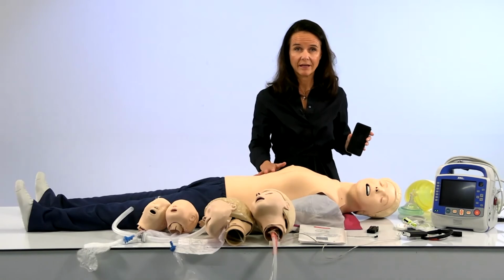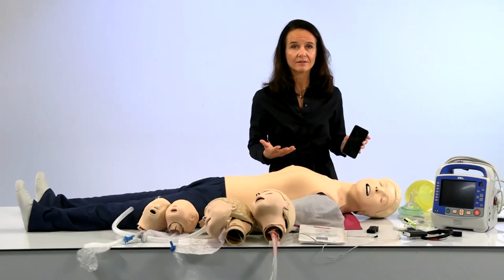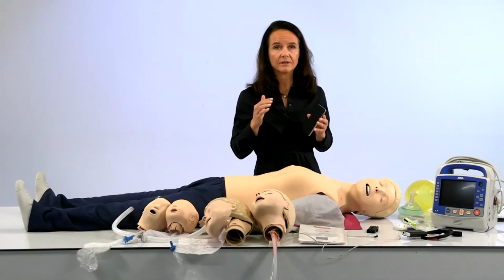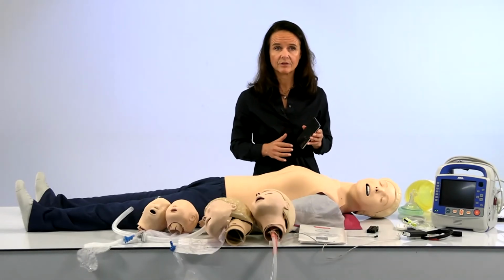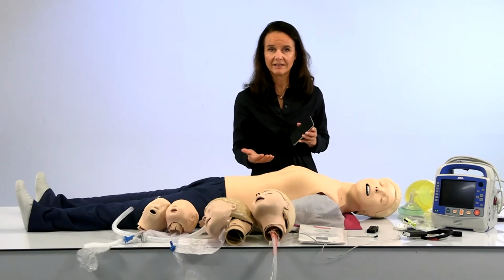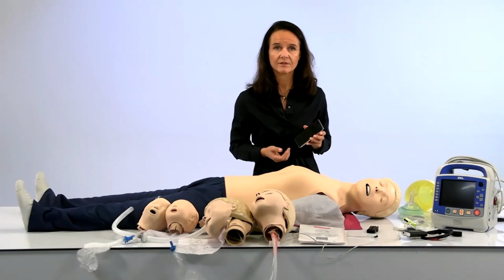And when we do have an AED skin for Junior, you will get a much better integrated experience. At that point, the application that you're using, whether it be SimPad Skill Reporter or Team Reporter, will know that you're connected to a pediatric mannequin with an AED skin, and it will provide the correct rhythms for you.